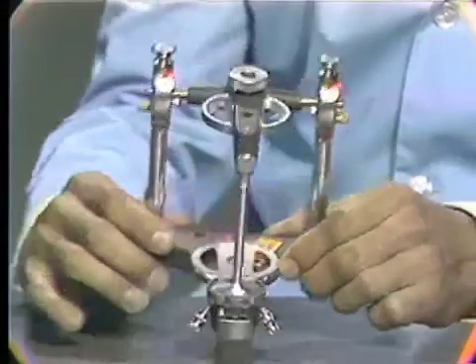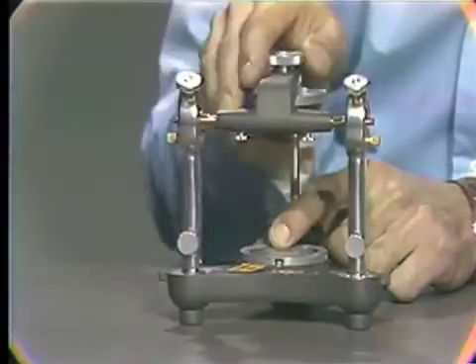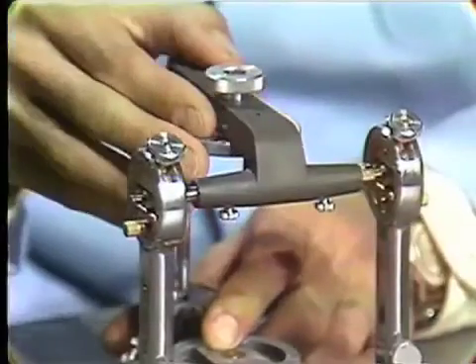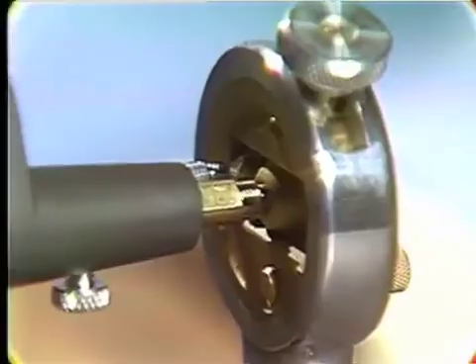The source of the error that develops is back here in the mechanism up above. You can see if they get in tight that there is end play in that area. This slop is what is to be removed.